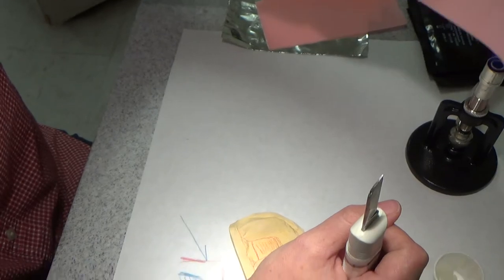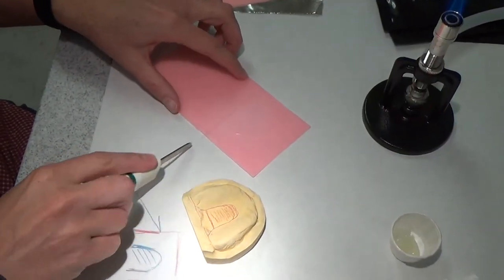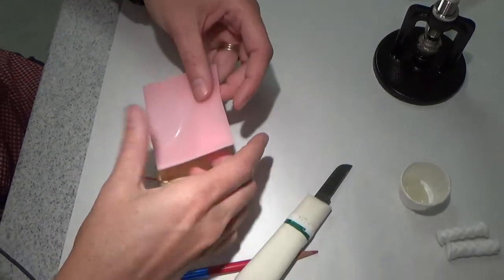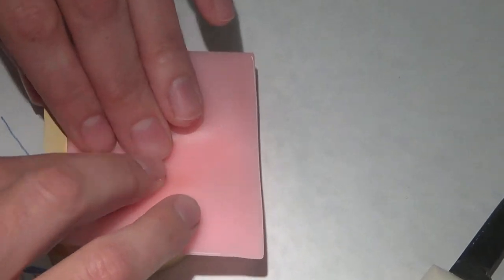Just heating it until it's kind of bending on its own. Heating my knife and cutting it. I'm going to lay this wax gently over.